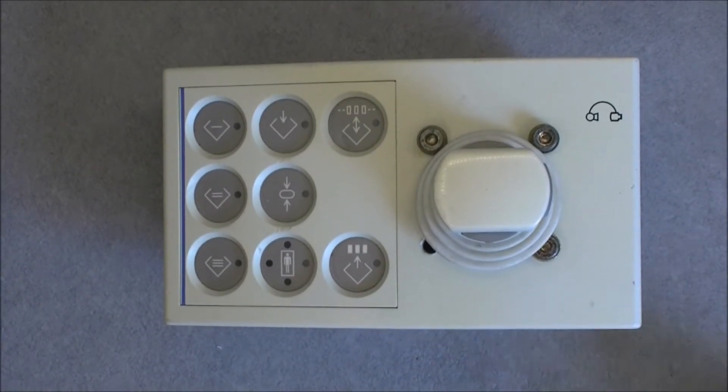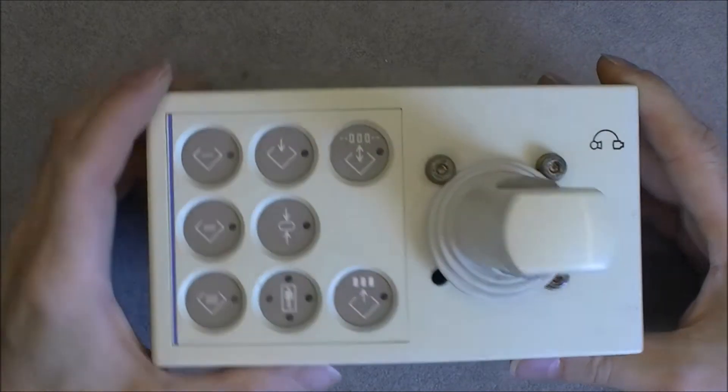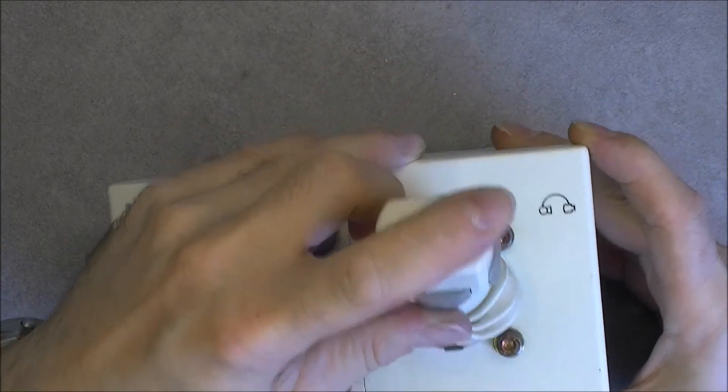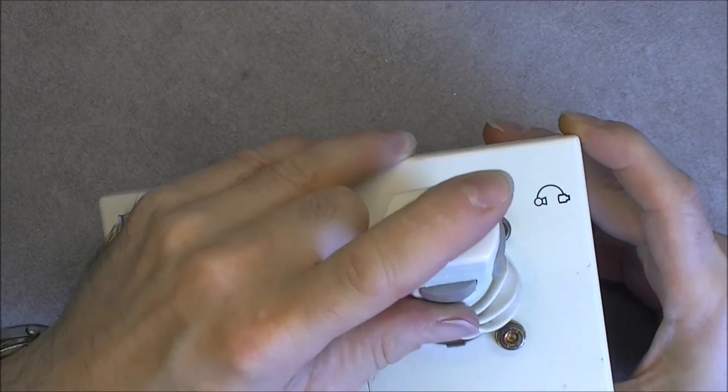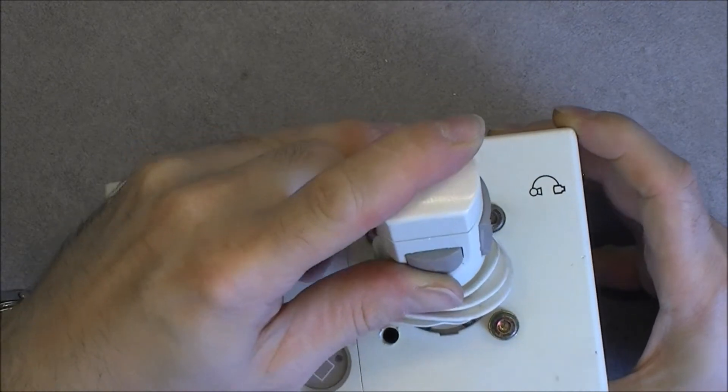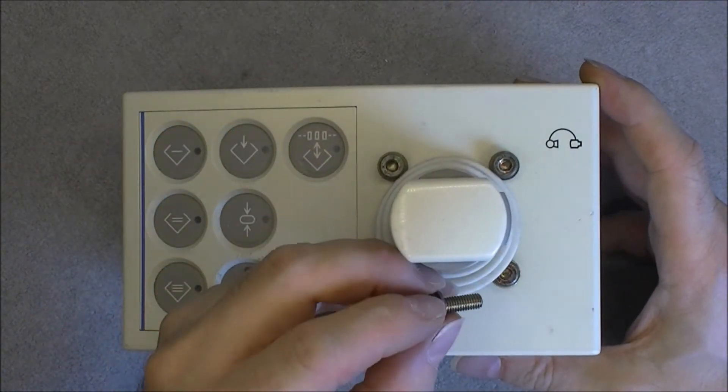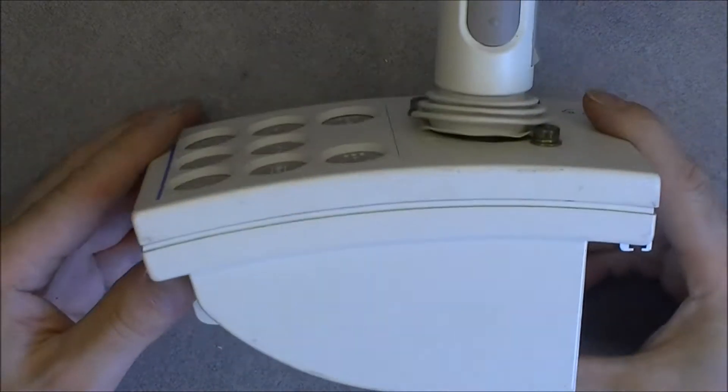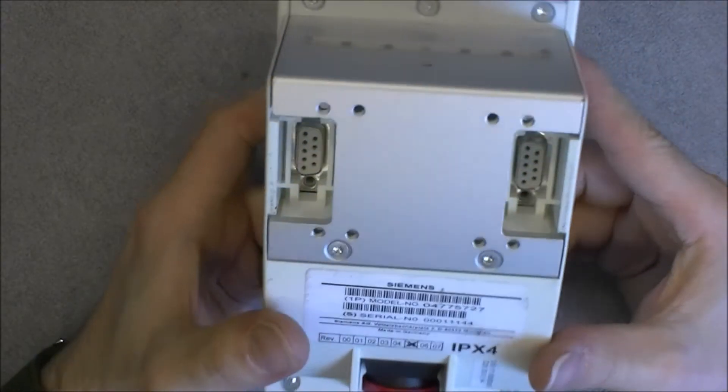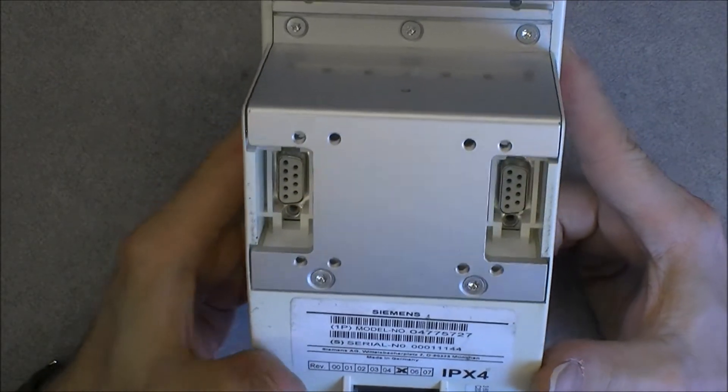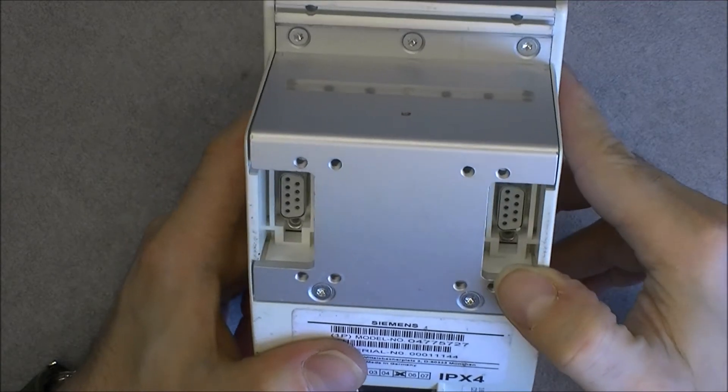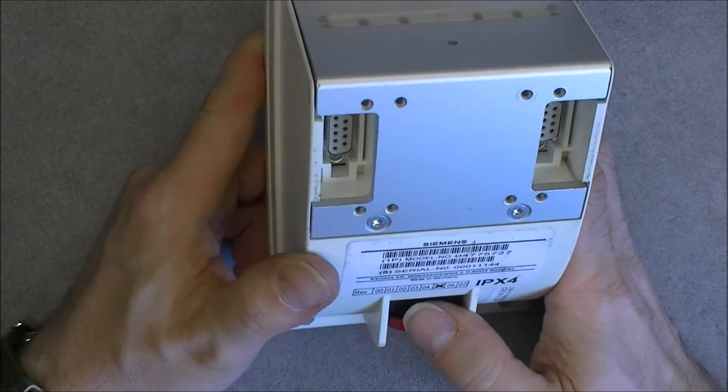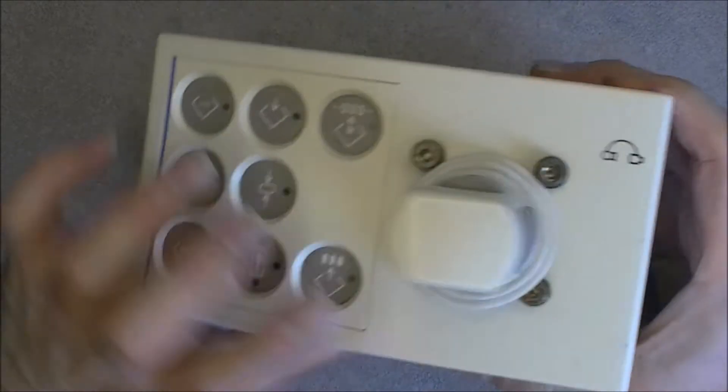Hi, today we will have a look into another model of Siemens X-ray controller. This one was badly repaired, as you can see. In fact, one of the screws was just attached with electrician tape around it, not very professional work. We have here two female plugs, not male like on the mouse controller.